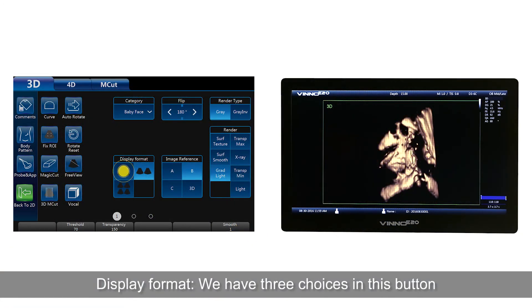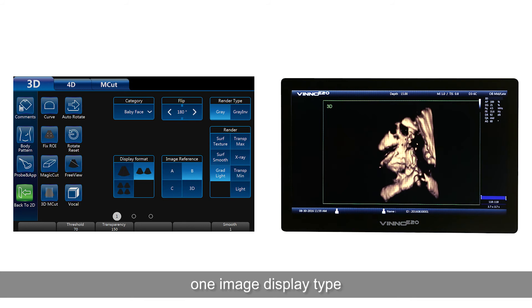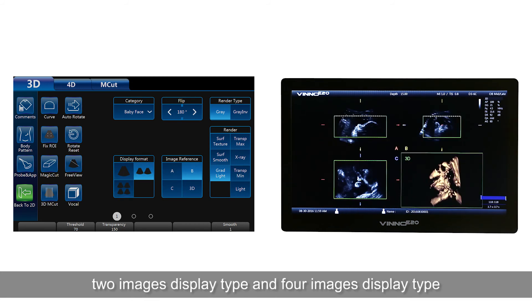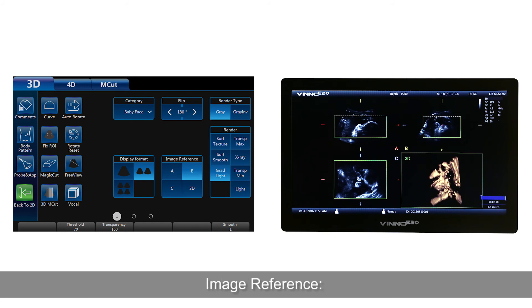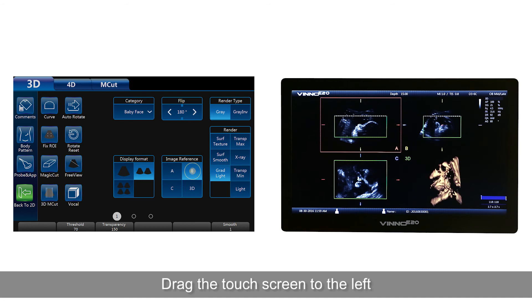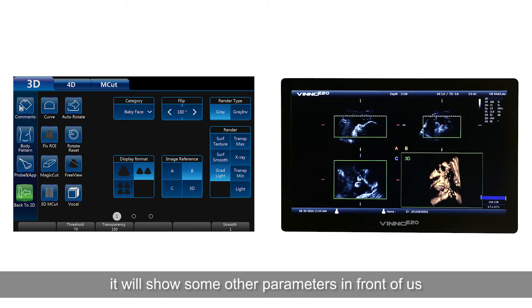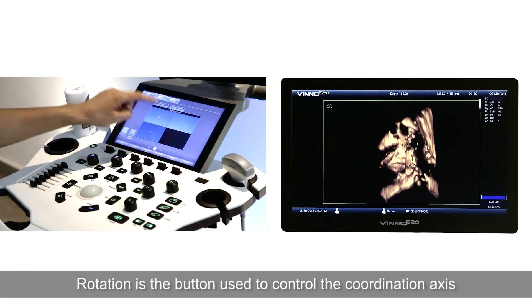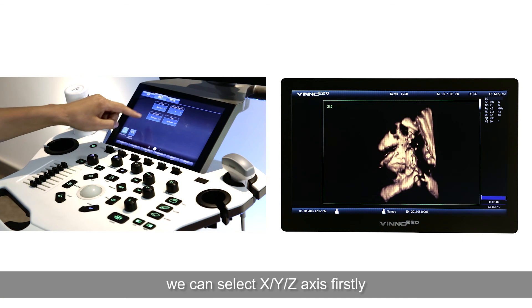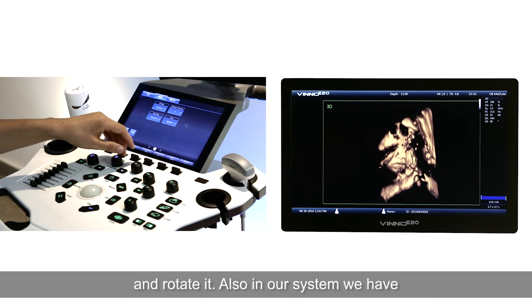Display format: we have three choices — one image display type, two images display type, and four images display type. Image reference: we can choose different images to display. Drag the touch screen to the left to show more parameters. Rotation is the button used to control the coordinate axis — we can select X, Y, or Z axis and rotate it.